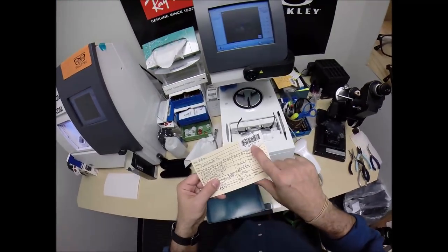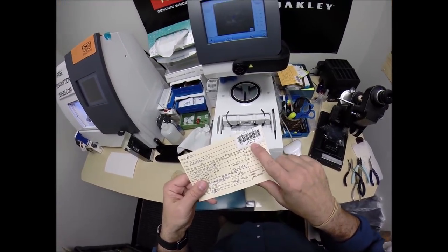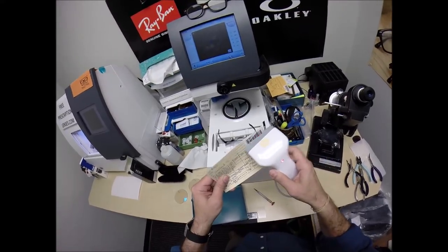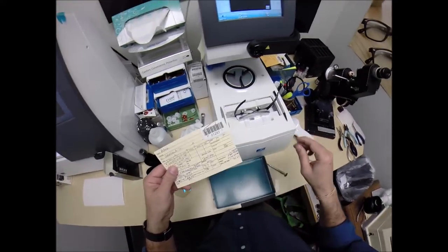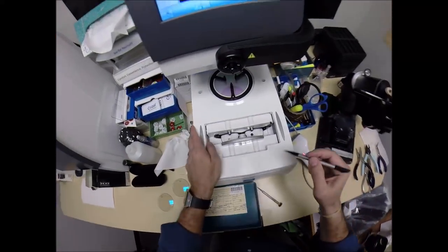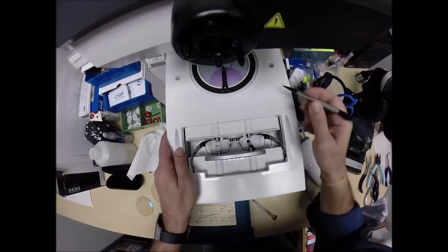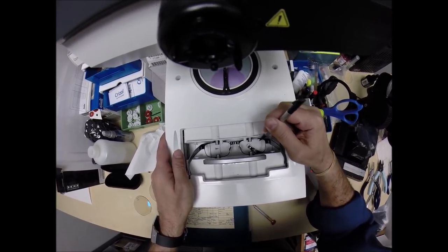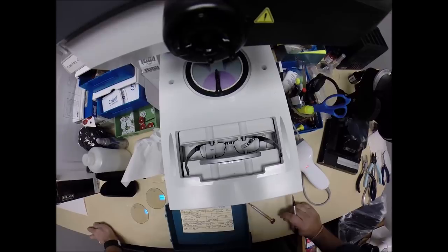But first, I want to assign this barcode to it, Secret Agent 1293. The reason why I'm doing this is once I cut the lenses one time, should Adam need any more lenses, I can mail them right to his home and I'll show you how to put them in where you don't drop the screw. So that little stylus is going to go around and trace the inside bevel of the right side of the frame before doing the same thing on the left.